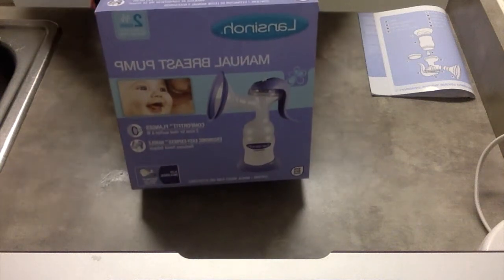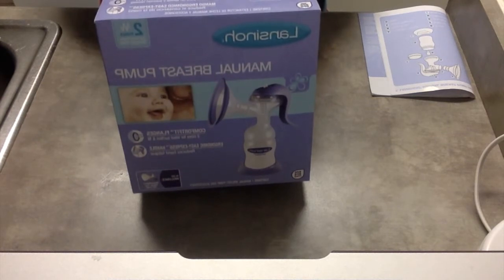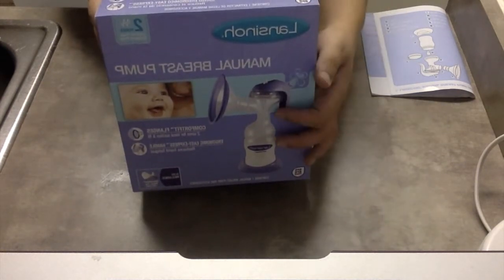Hi everyone! Today I wanted to just do a quick review and assembly on how to put together the Lansinoh manual breast pump.